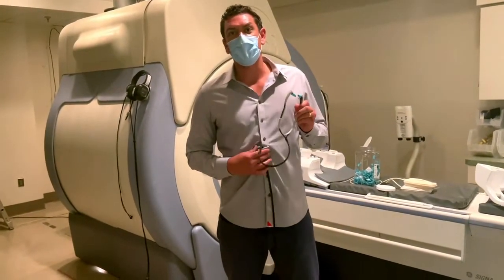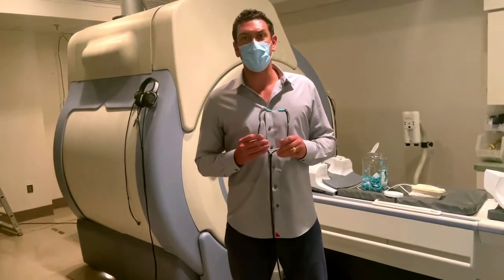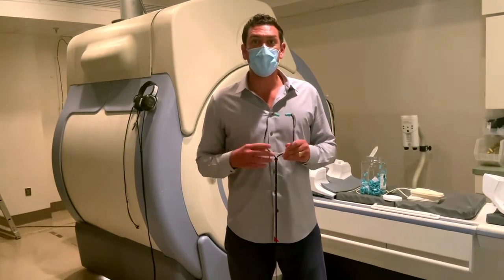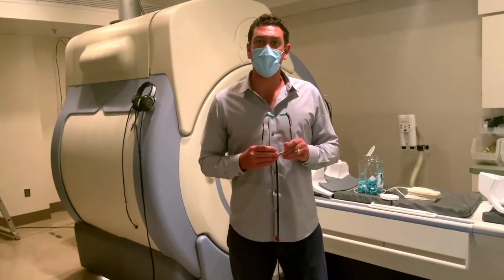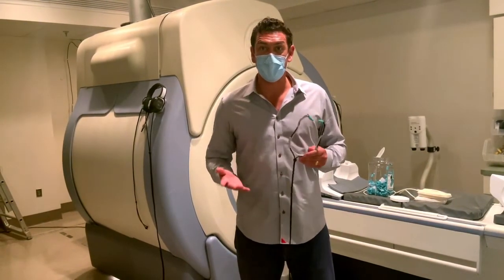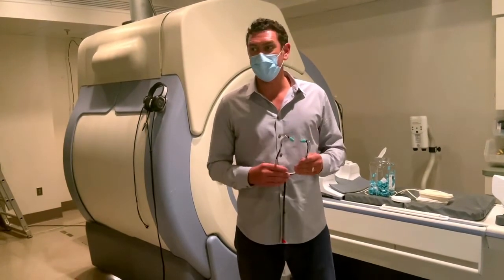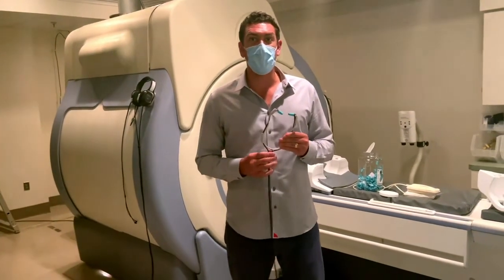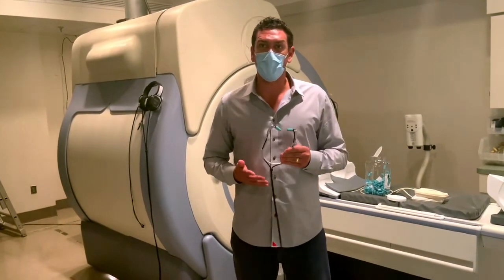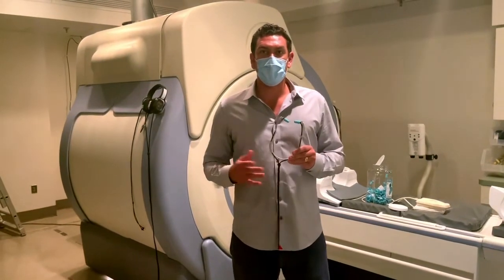It's worth mentioning that the over-ear headphones do not require ear plugs because they provide 29 decibels of hearing protection on their own. I'm going to include all of my contact information at the end of this video. If you have any questions, please do not hesitate to contact me — my goal is to make your life as easy as possible and I'm here to help. The systems are fully warrantied, so if anything breaks, please contact me. Our policy is to overnight replacement parts to your facility at no additional cost.